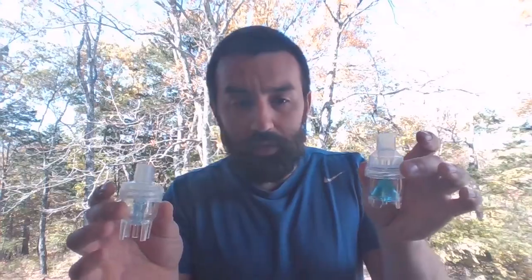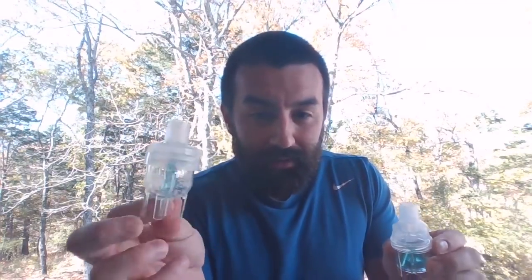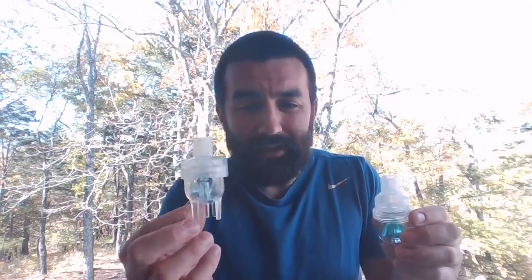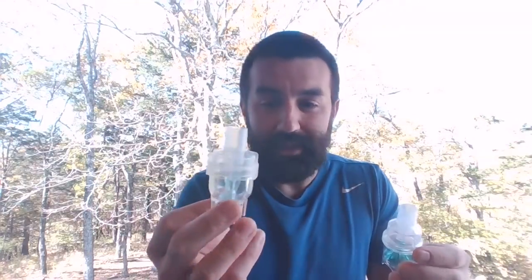So let's talk about two of the most common. I'm going to talk about some of the parts on them, and I'm going to talk about the different hookups here. So we call these just regular jet nebs. These are the standard, been around for a long time. I often slang-wise refer to this particular one with the blue piece that we're going to talk about in a second as the Misty Max. It's still a jet neb, nothing special. It's just what the actual order is when you order these. These are Misty Max nebs.